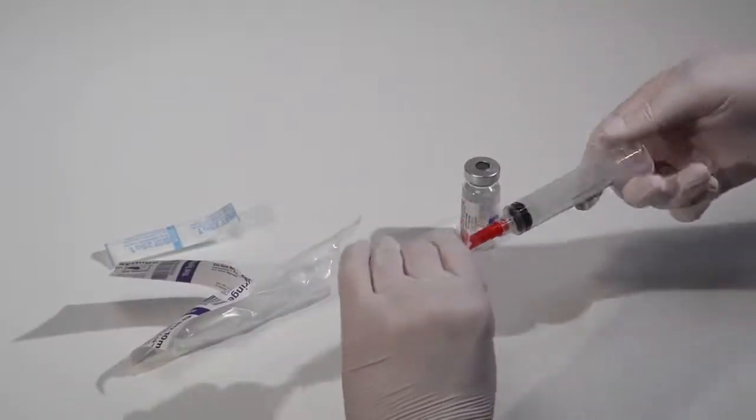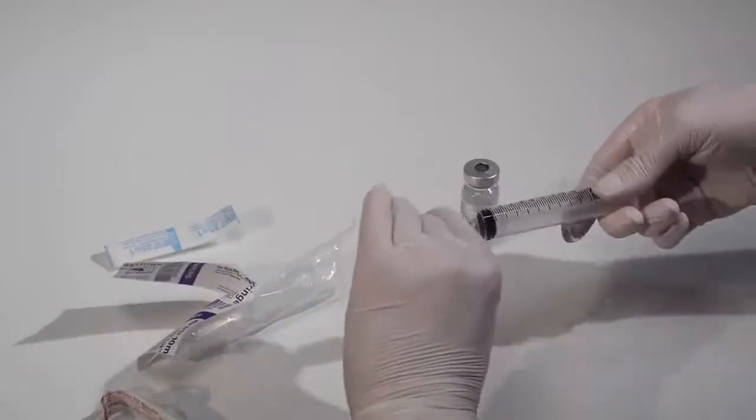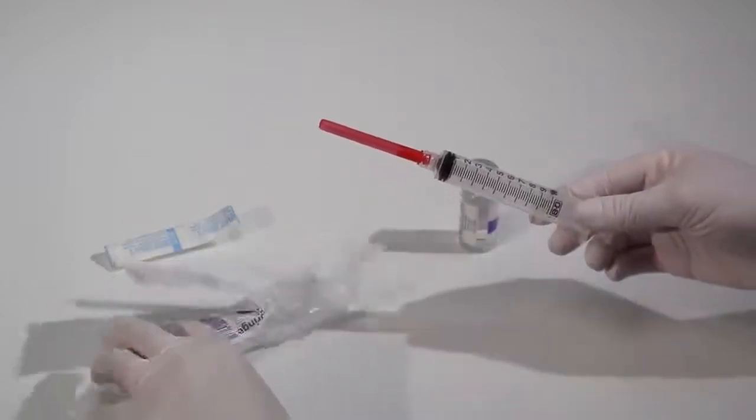Connect the syringe tip to the hub of the needle. Always check for a secure connection between the needle and syringe.